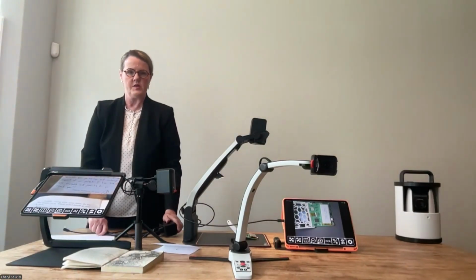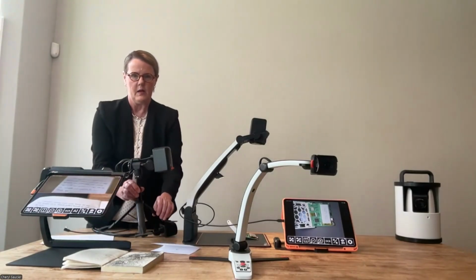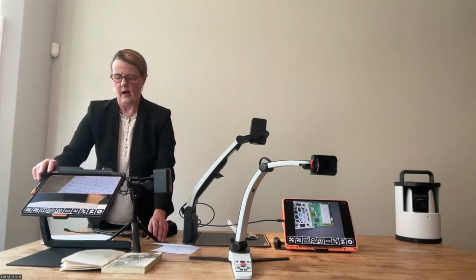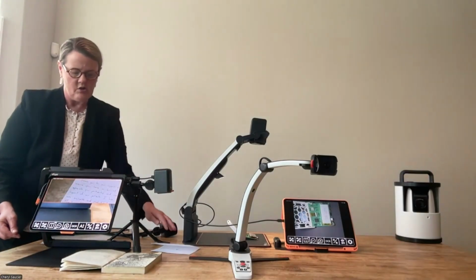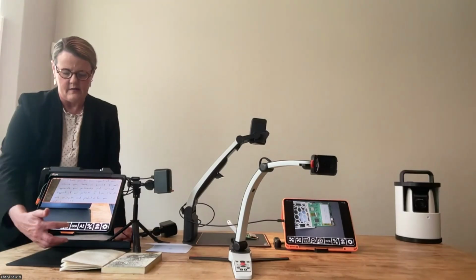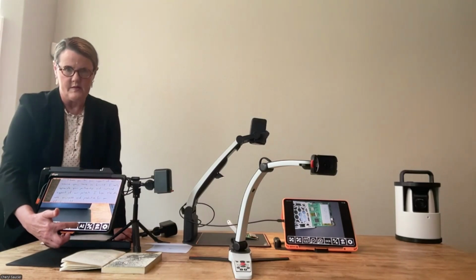Another way you can use it is to plug in one of our other cameras. In this instance, I have our Magnilink Mini. So here's our Magnilink Mini, and it is plugged into this particular iTab product. I mentioned that we have good AI integration, so I just want to give you a quick taste of that. I've got my icons down on the bottom, and I'm going to move over to the one that says AI and hit that one.